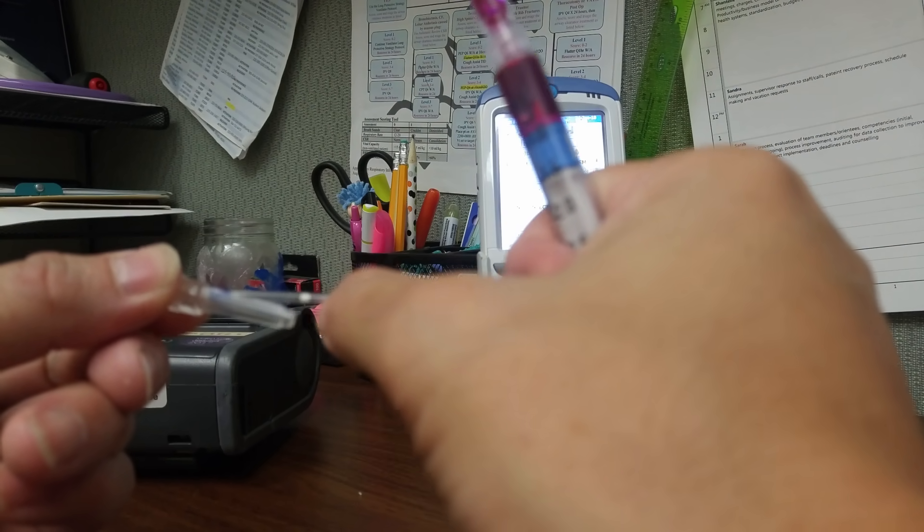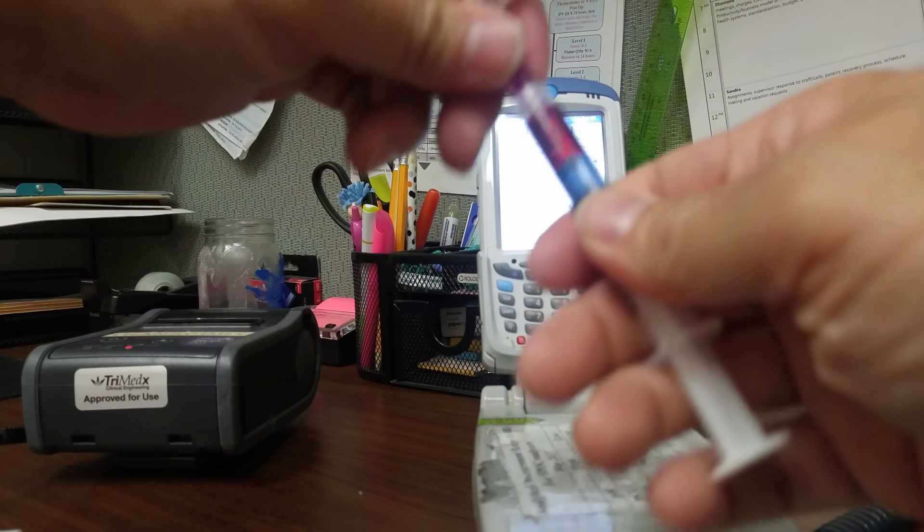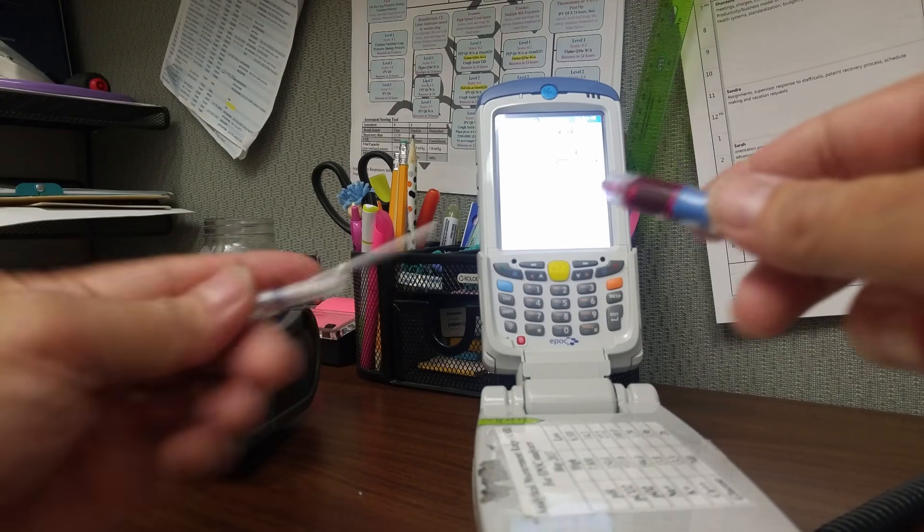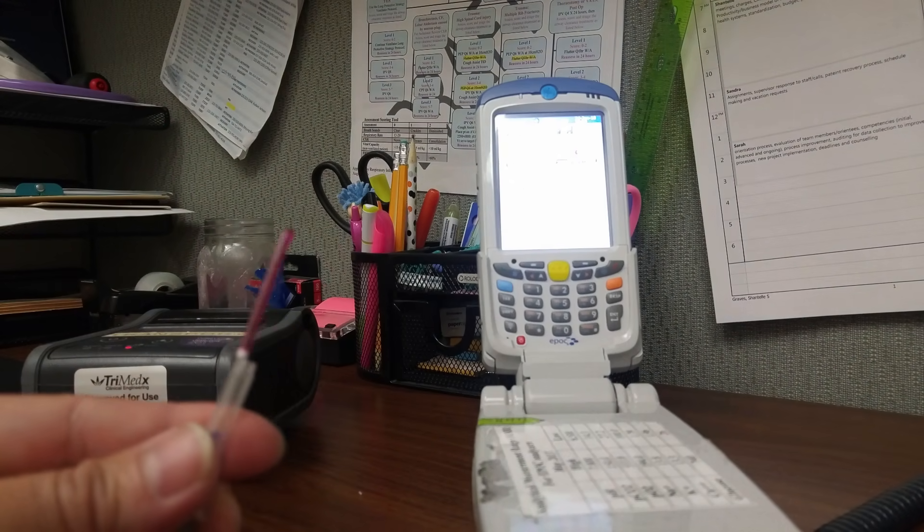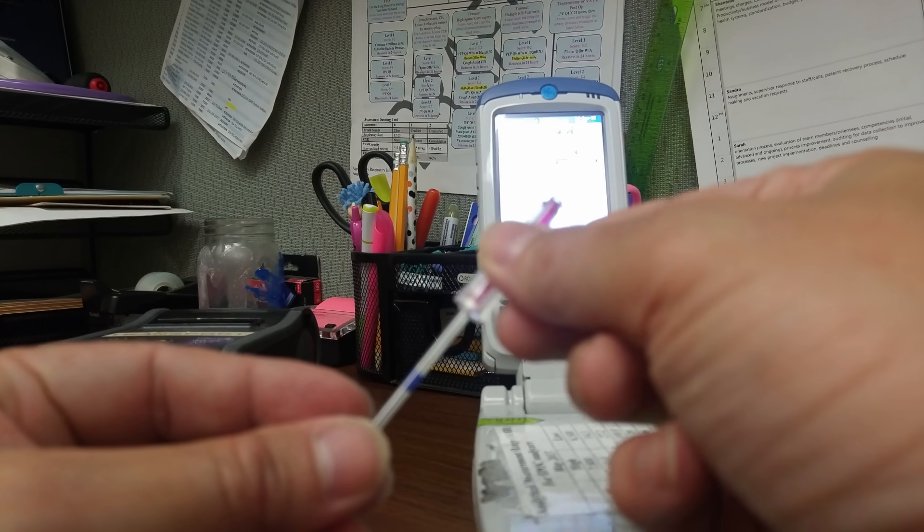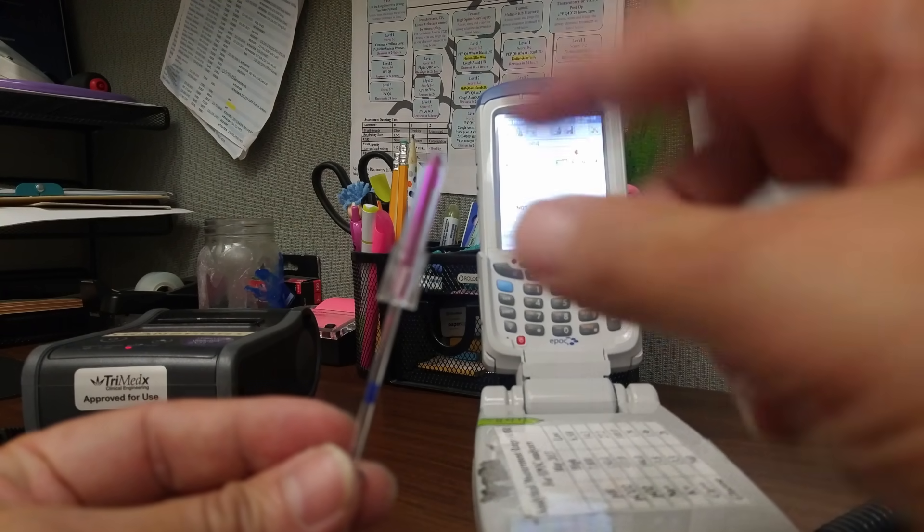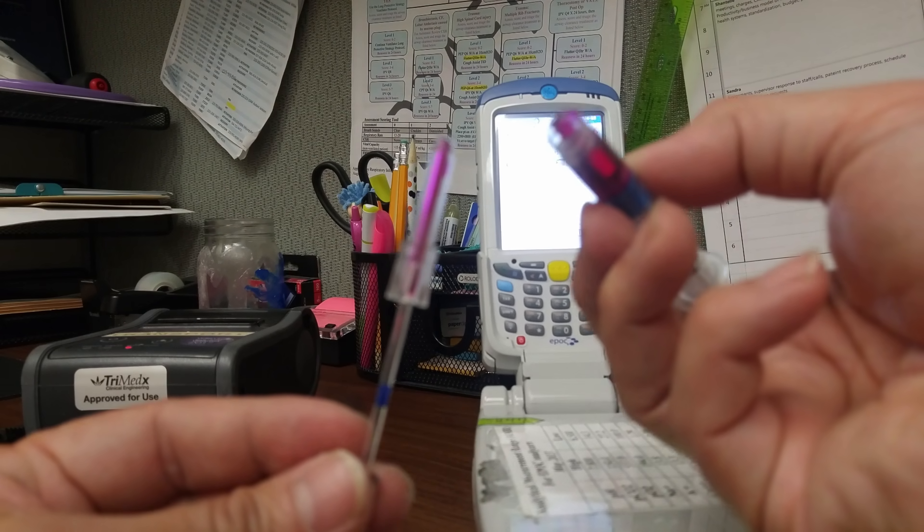Now I'm going to put some sample in so you can see. Put the cap on top, okay, and this acts like the tip of the syringe.